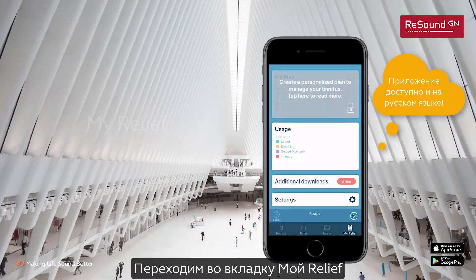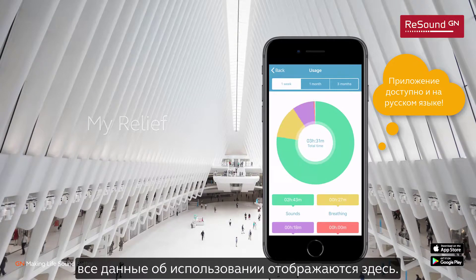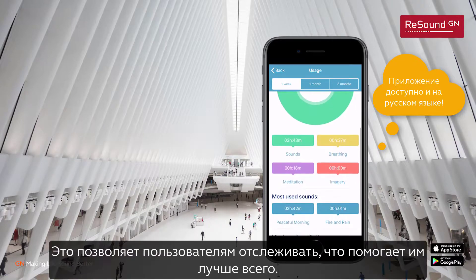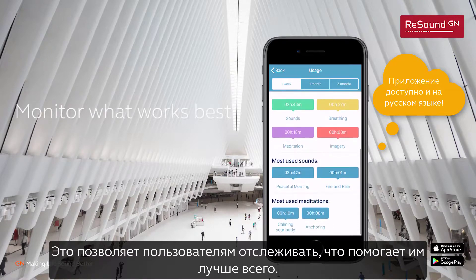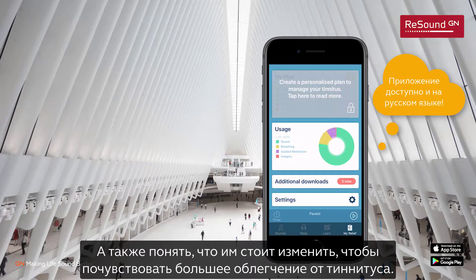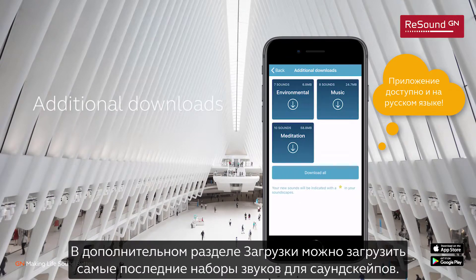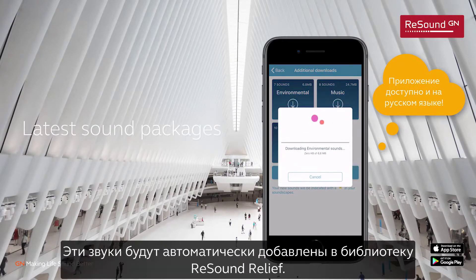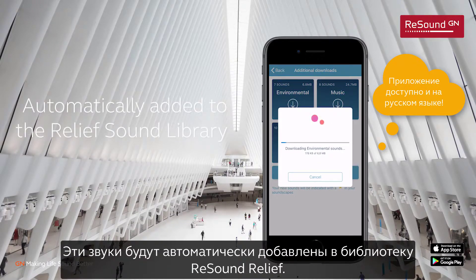Moving on to MyRelief. When relief tools are used, all usage data is collected and displayed in MyRelief. This allows the user to investigate and monitor what is working best for them and what they might want to change to better help manage their tinnitus. In the Additional Downloads section, the latest sound packages can be downloaded, and these new sounds will be automatically added to the Relief sound library.